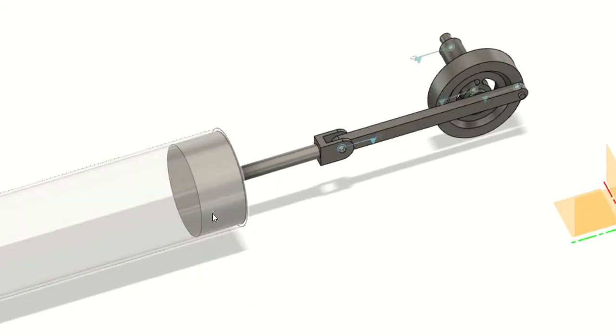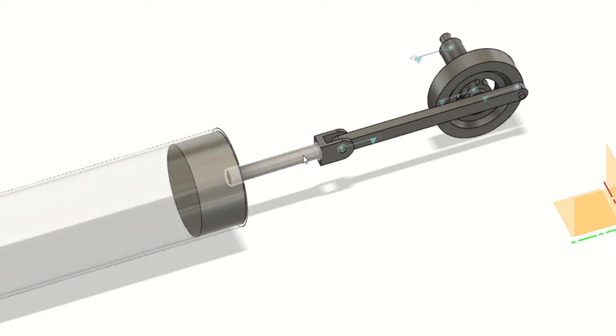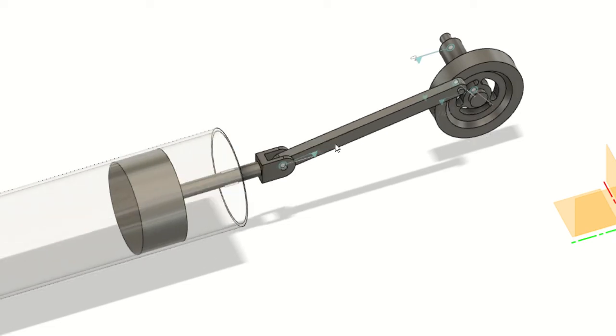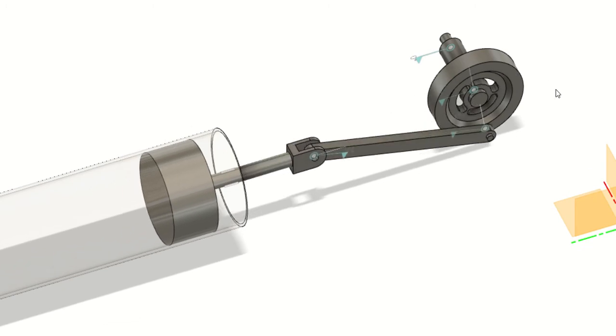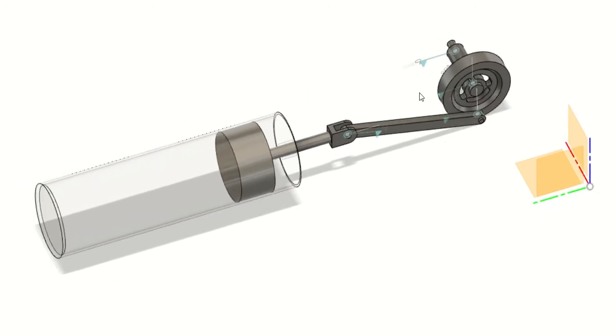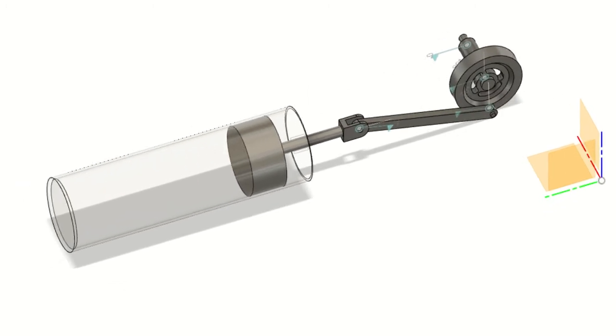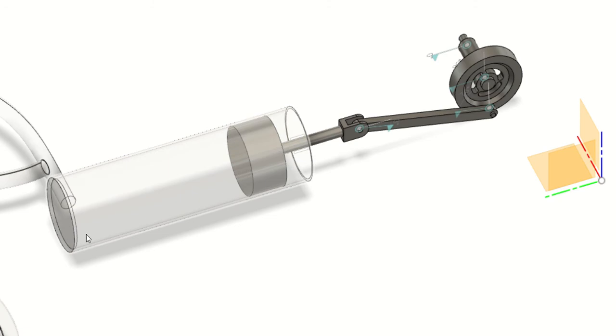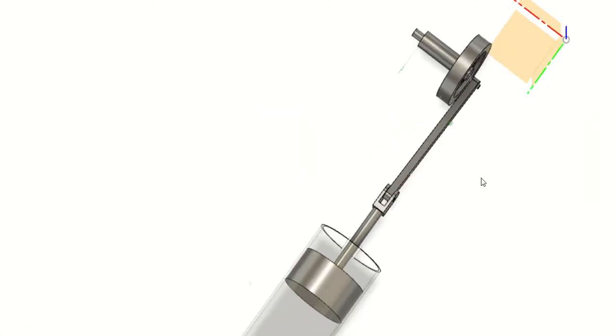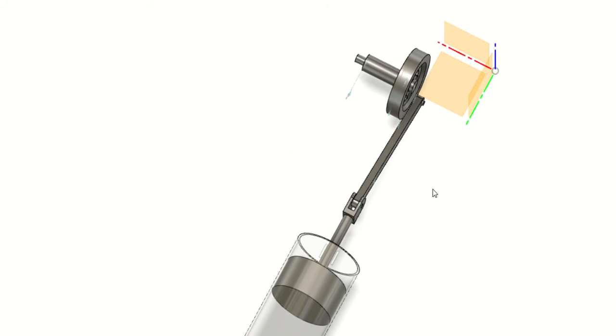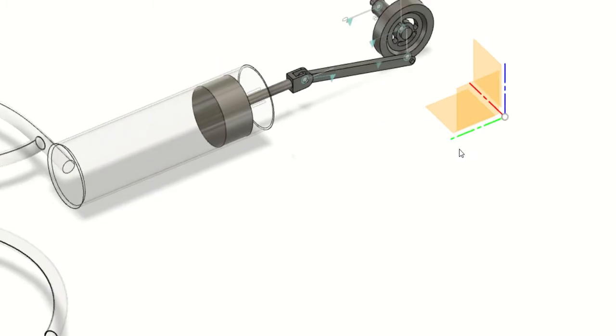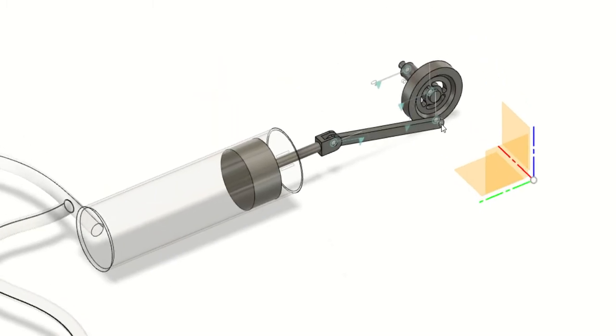It's simple. However, I haven't drawn the rings on the piston here to keep the drawing simplified. You can make rubber notches around the piston so that no air will be able to escape. I've also shown the tubings which will go here - the expiratory valve and expiratory tubing is not shown here, which I forgot to add actually.